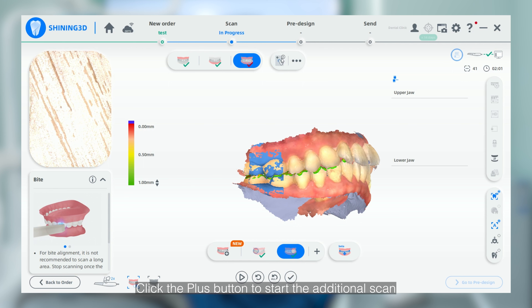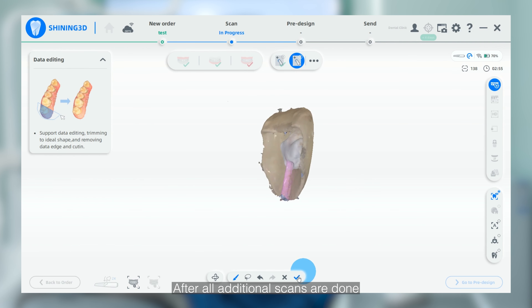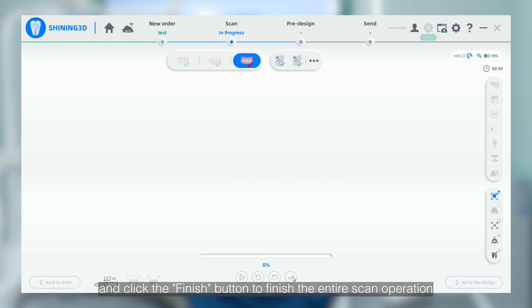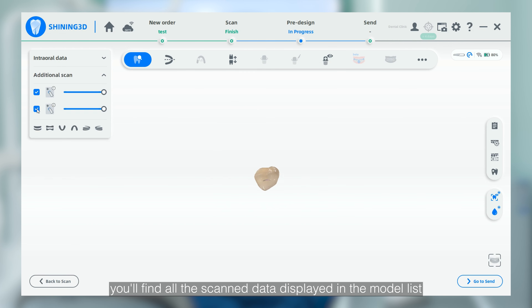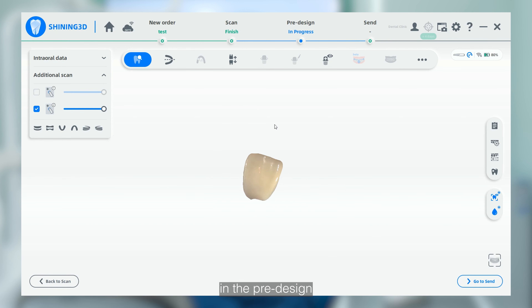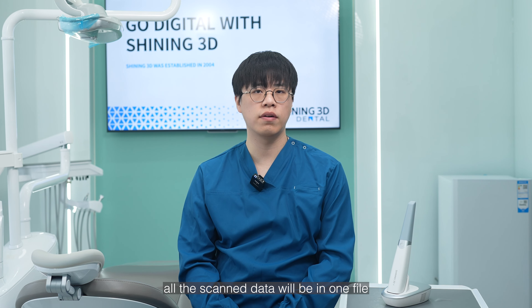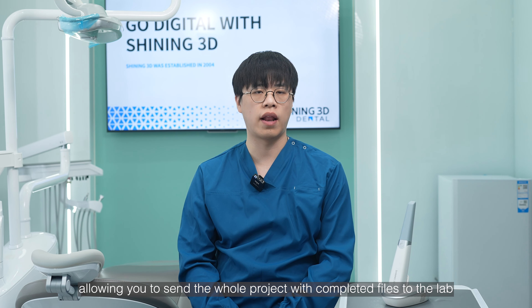Click the plus button to start the additional scan. After all additional scans are done, return to the occlusion scan step and click the Finish button to finish the entire scan operation. After data post-processing, you will find all the scan data displayed in the model list in the pre-design. Upon completing the entire workflow, all the scan data will be in one file, allowing you to send the whole project with complete files to the lab.